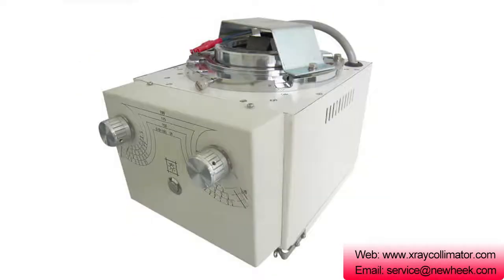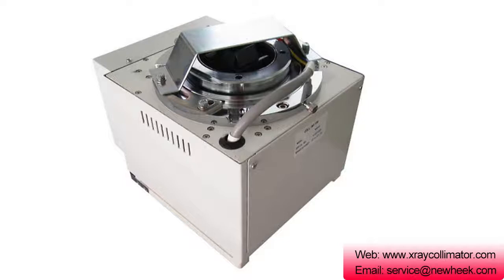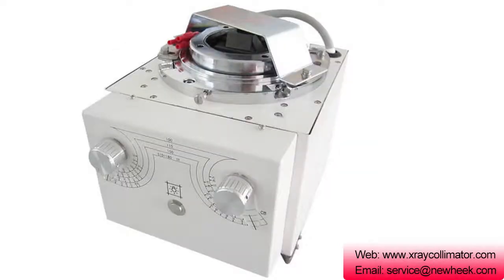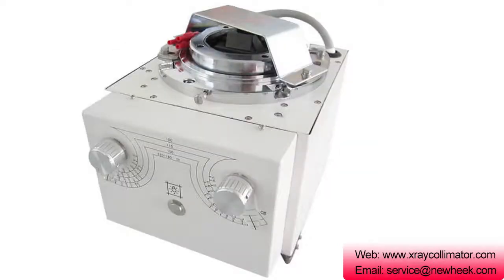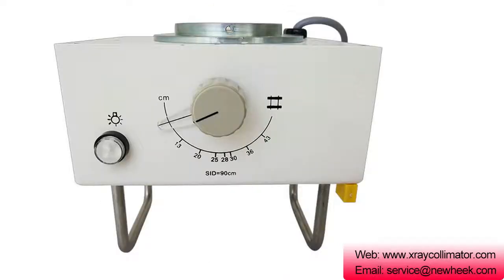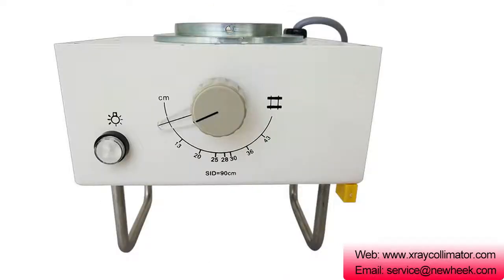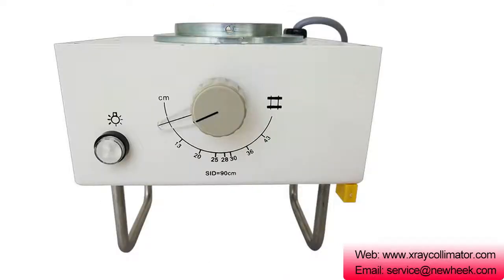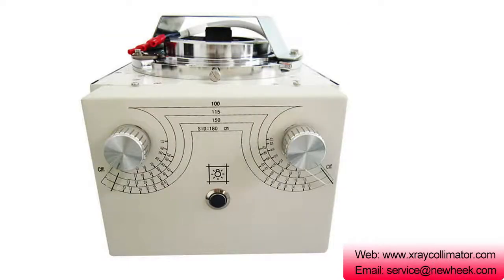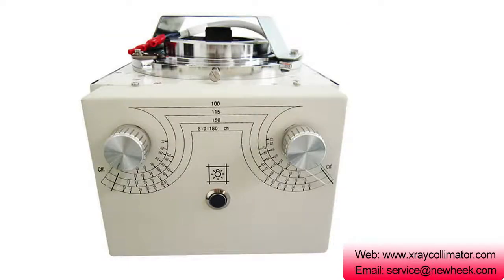It also absorbs some scattered rays to improve the clarity of the image. In addition, the X-ray Collimator can indicate the size of the projection center and projected field of view. Therefore, the X-ray Collimator is an indispensable auxiliary device for X-ray shooting and protection.